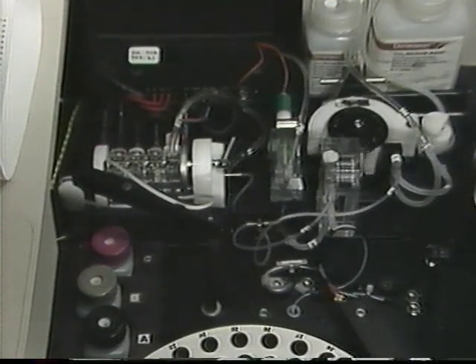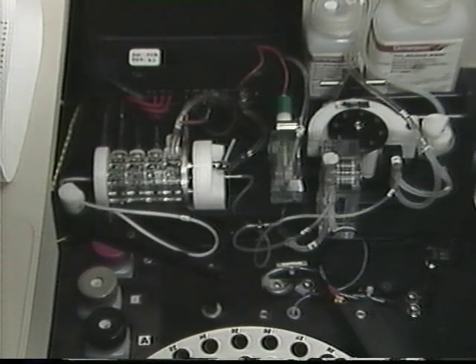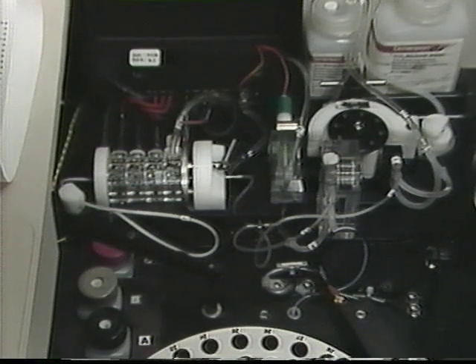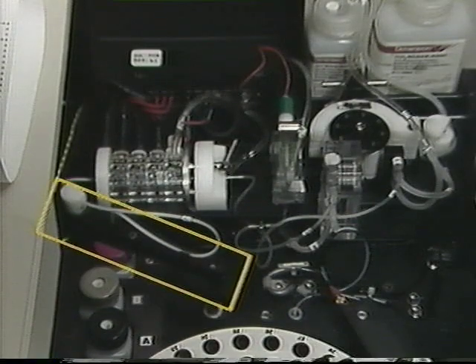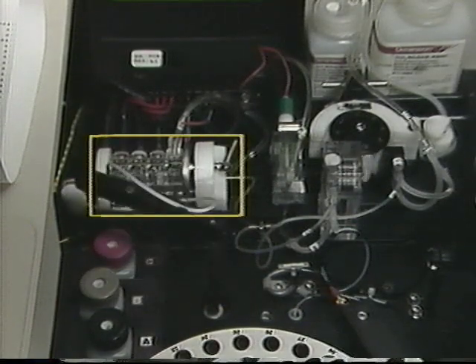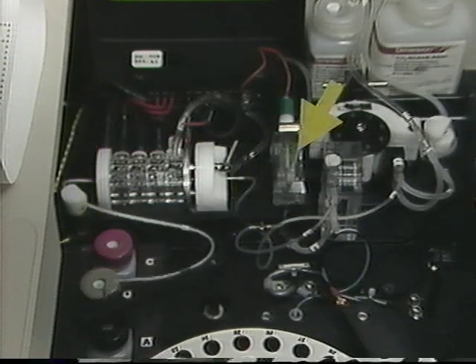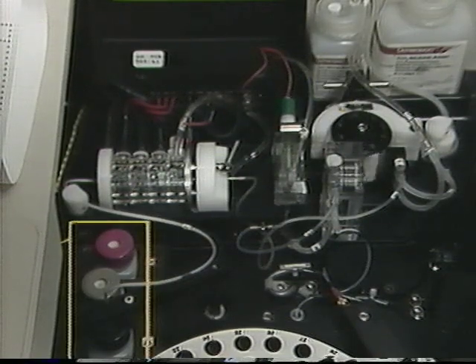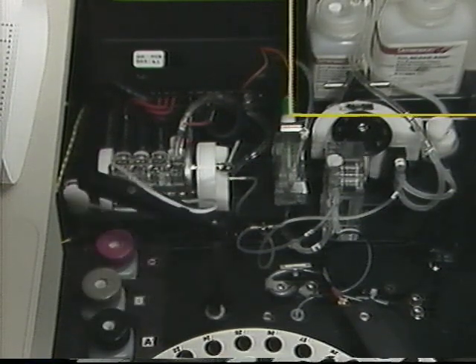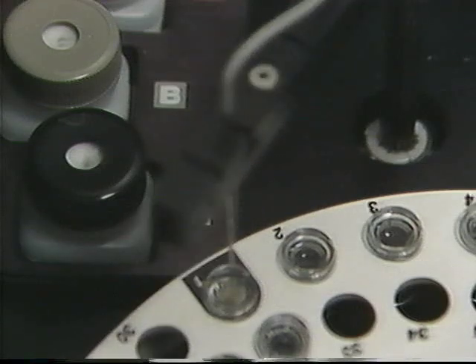The second major component of the sample area is the ion selective electrode, or ISE system. This independent station allows electrolyte testing on serum or urine to be done concurrently with photometric measurements. The ISE system is composed of its own sample arm, an electrode stack containing sodium, potassium, chloride, and reference electrodes, a separate TCO2 electrode, a peristaltic pump, 3 standard bottles, and 2 reagent bottles.